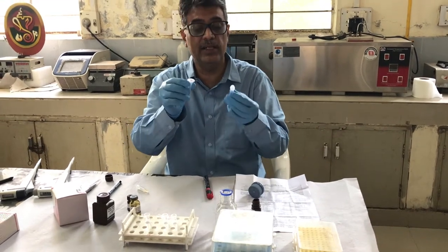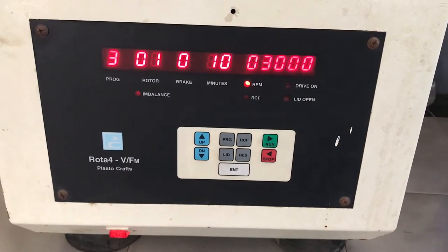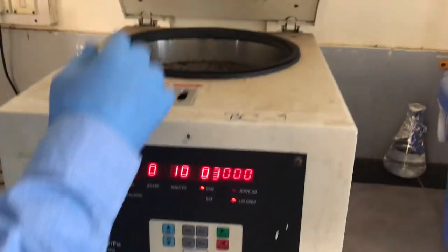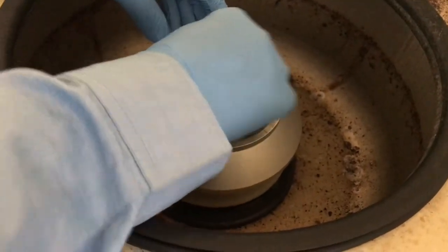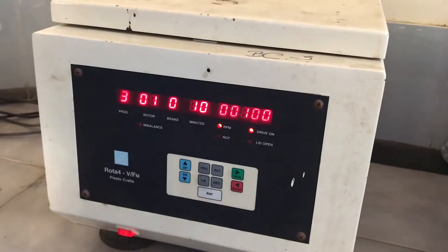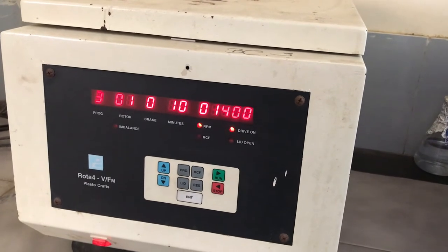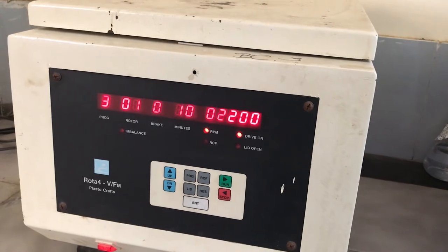Now we have two tubes: one is the sample and the other is just the balancing tube. Both contain 200 microlitre. We will centrifuge for 10 minutes at 2,000 to 3,000 RPM. We have set centrifugation at 3,000 RPM. I will place both tubes across from each other for balancing and press run. We will spin for 10 minutes, after which the precipitate will be at the bottom and we will take the supernatant for HDL analysis.